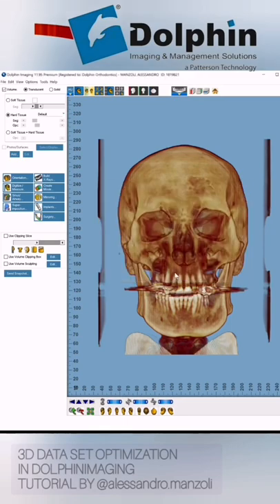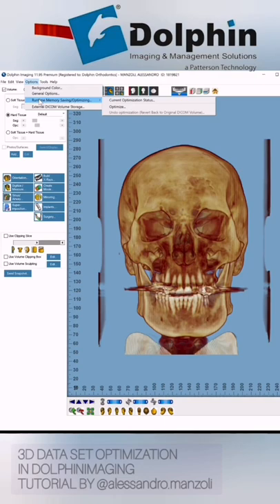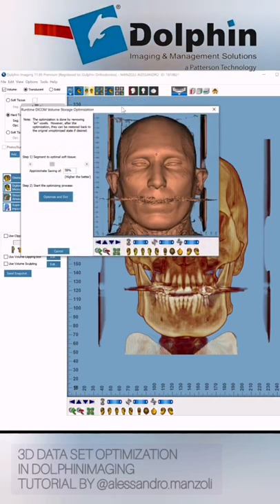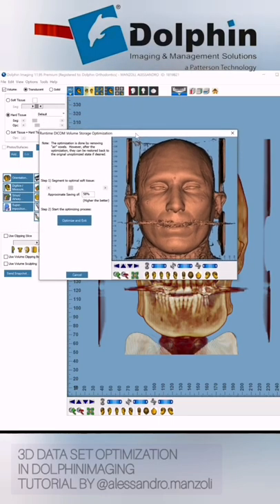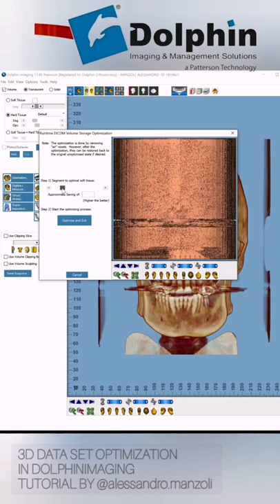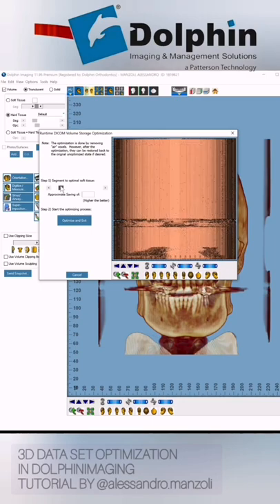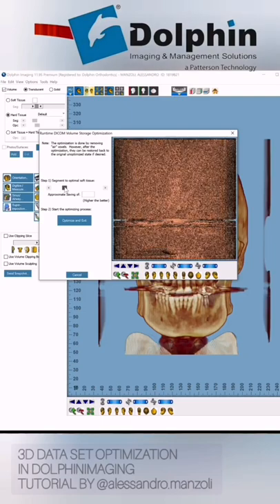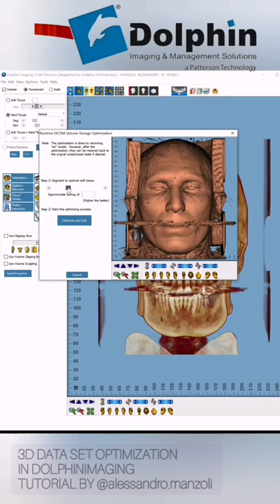The other step you need to perform is the runtime optimization. So we go to Options and run the runtime optimization tool. We go to Optimize. What is this optimization? Basically the idea is to remove the voxels that represent the air around the head of the patient. You can see we have this segmentation value here. If I move this all the way to the left, you see a representation of the air voxels that I'm not interested in and that are currently in memory. Moving this slider, you can perform a segmentation where you can see the soft tissue of the patient, and this will save 58% of your memory, which is quite a lot.